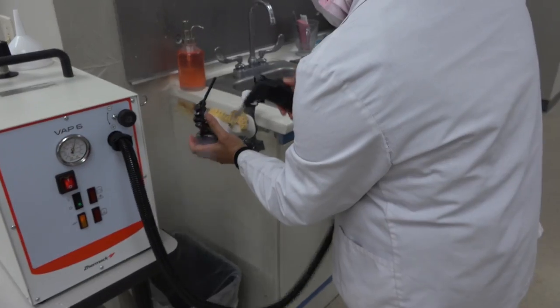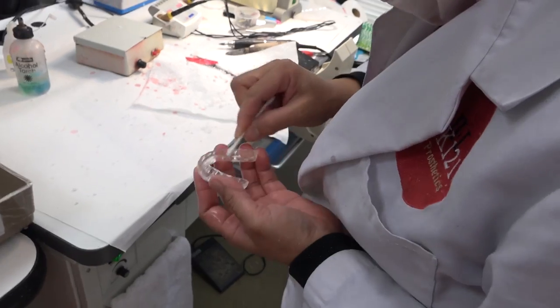Clean night guard. Clean master model. Check the final fit of the night guard.